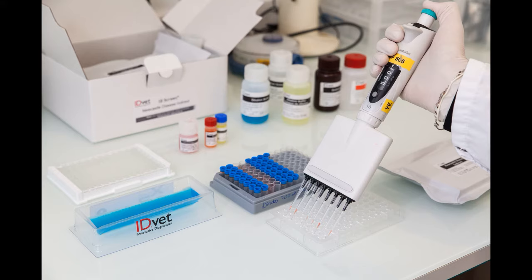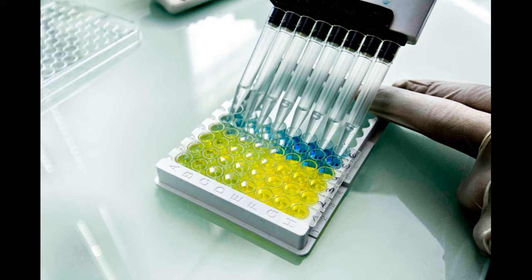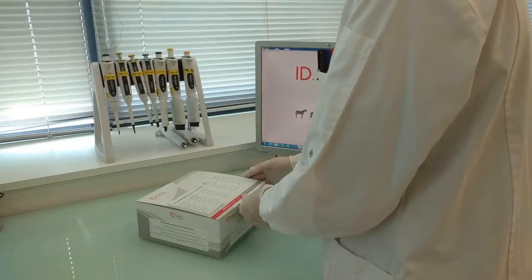ELISA testing is the most suitable tool for disease diagnosis and vaccine monitoring. It is a fast technique, easy to implement with possible automation for large-scale screening.